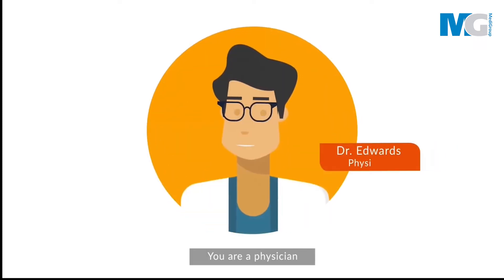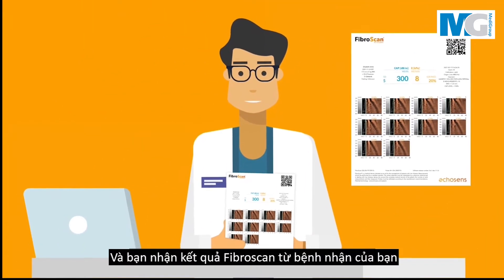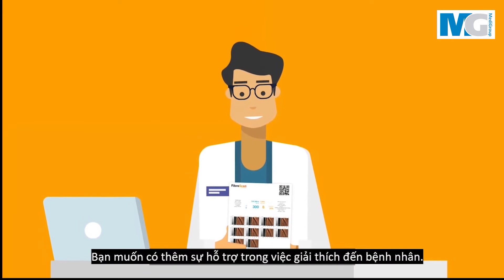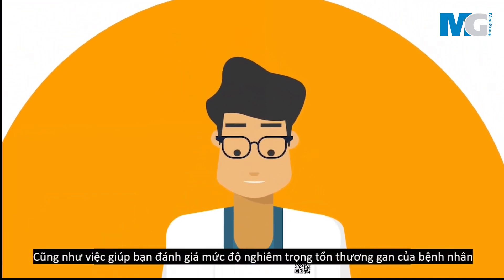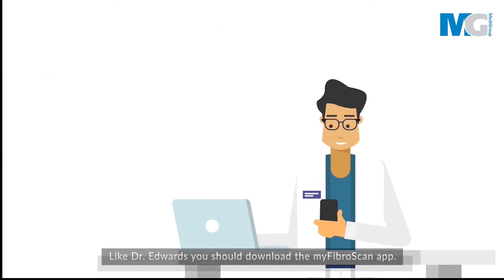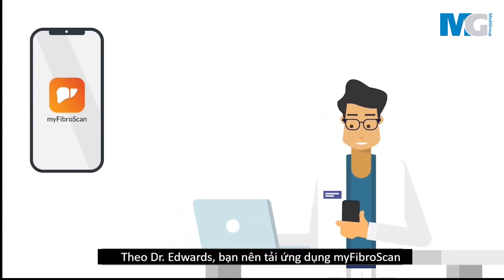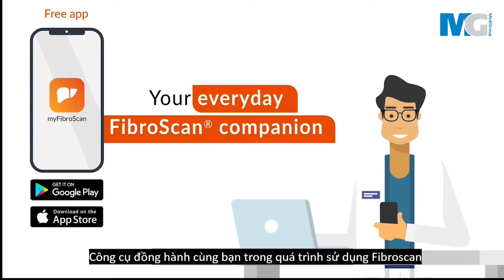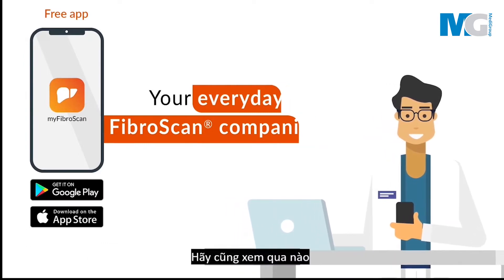You are a physician and you receive your patient's FibroScan results. You want some help in the interpretation as you assess the severity of your patient's liver damage. Like Dr. Edwards, you should download the MyFibroScan app — your everyday FibroScan companion. Let's check it out.